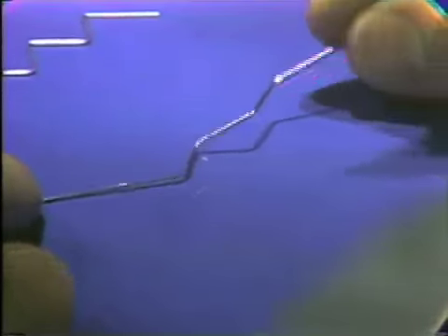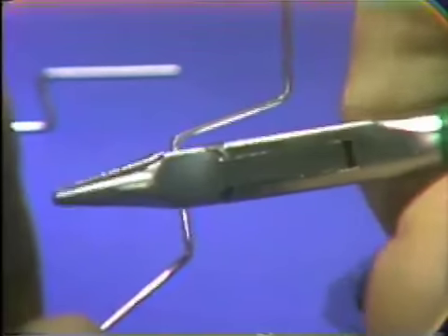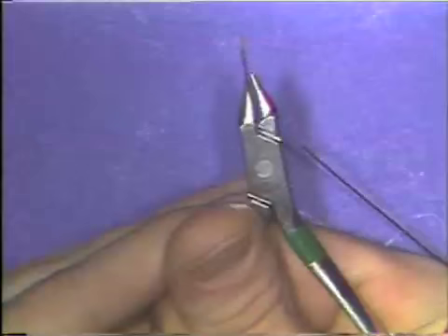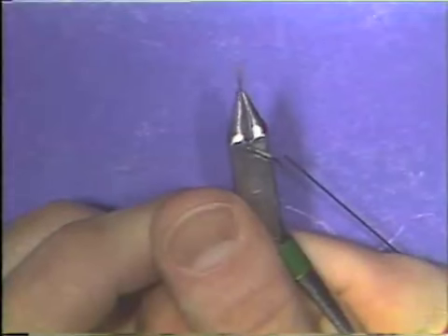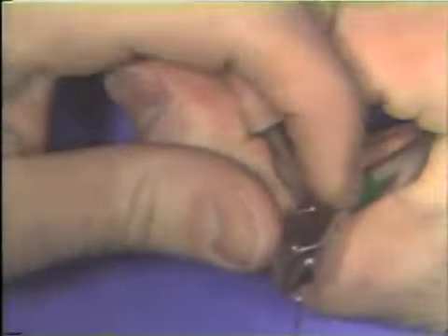The procedure then is to place the wire in the flat base portion of the beaks of the plier, just to the side of the mark that you made, and orient the wire so that the flat portion is directly parallel to the long axis of the beaks of the plier from the side view. And the wire is simply bent down then until it approaches parallelism with the part that is already flat on the table.